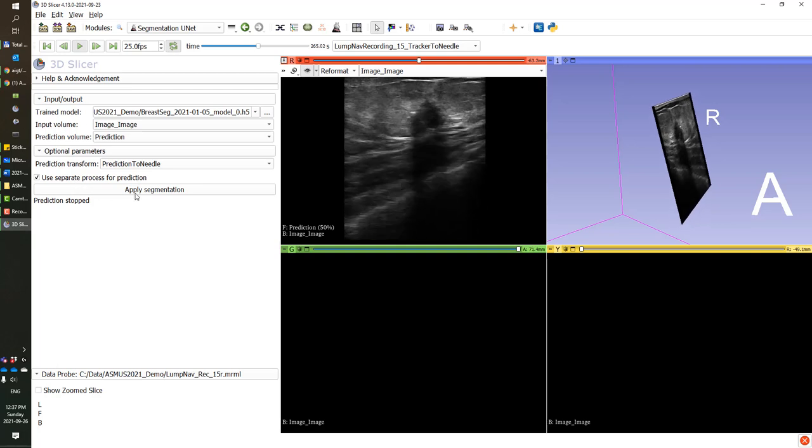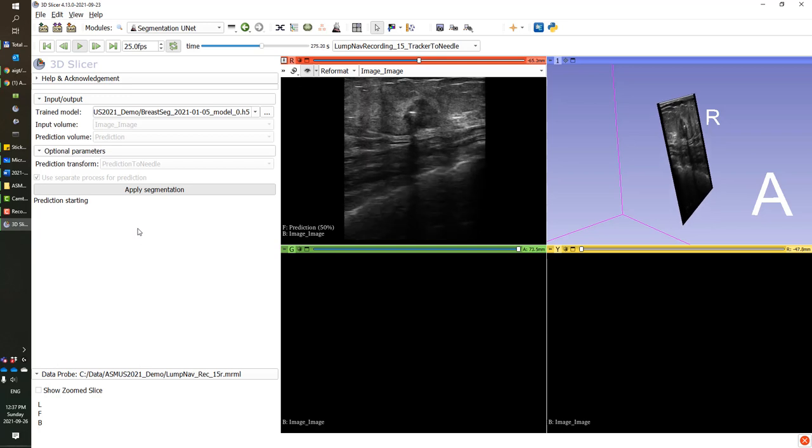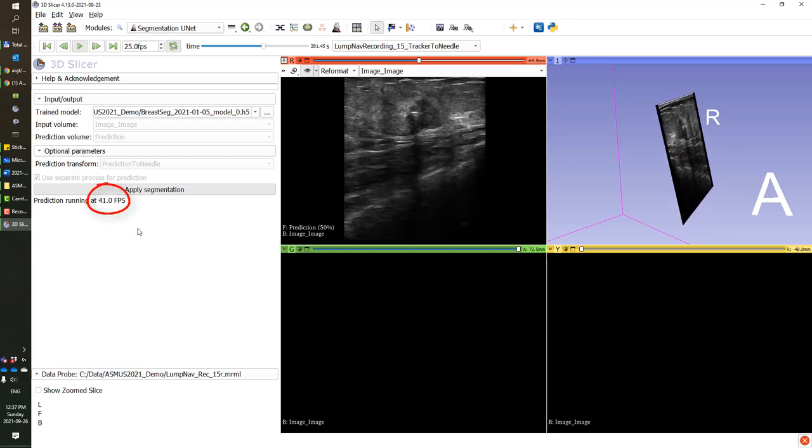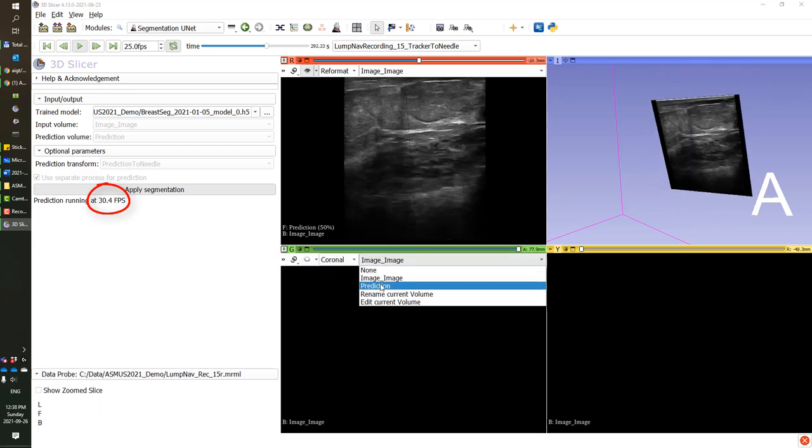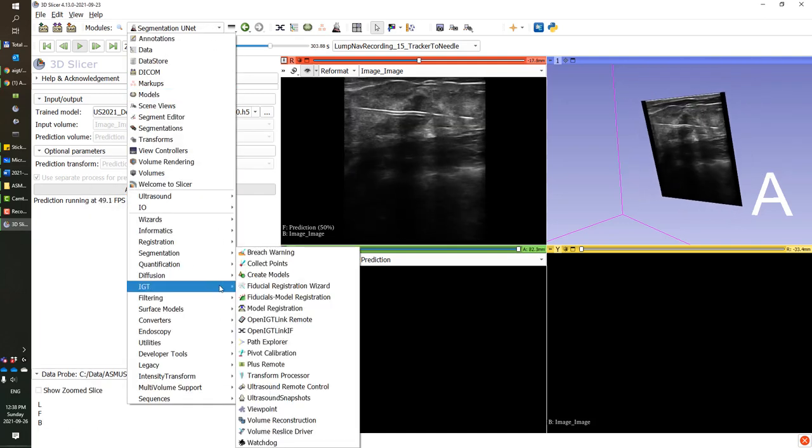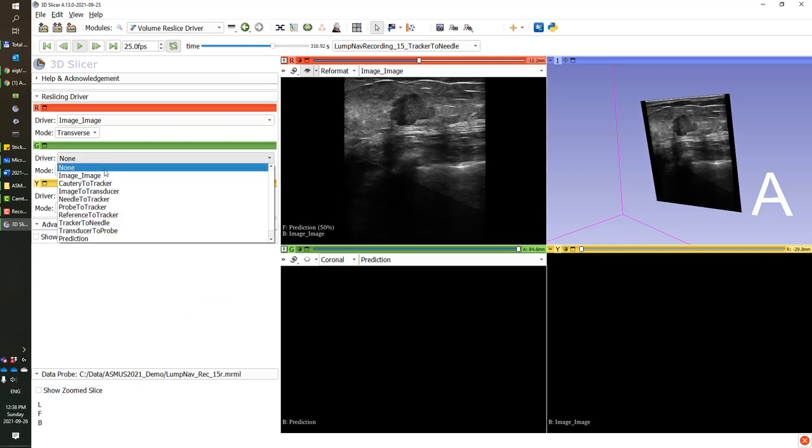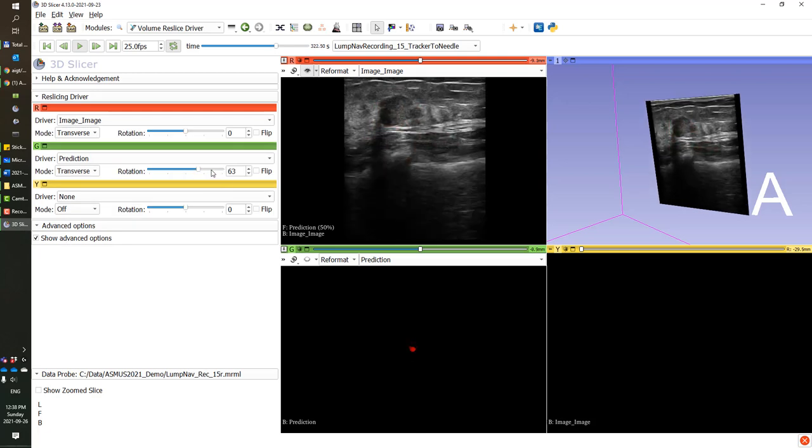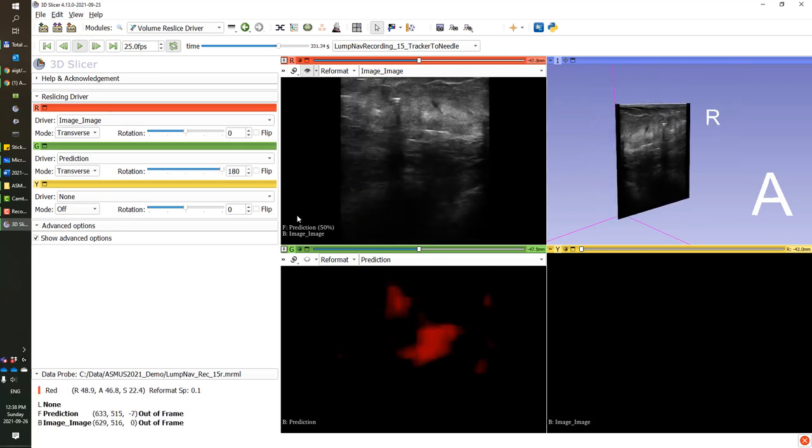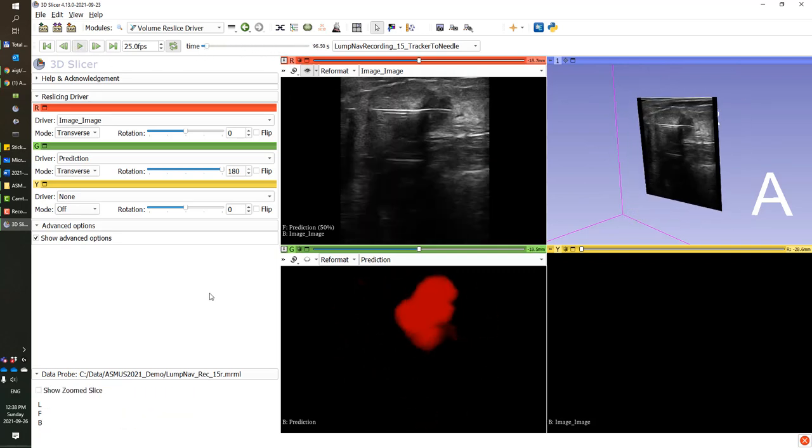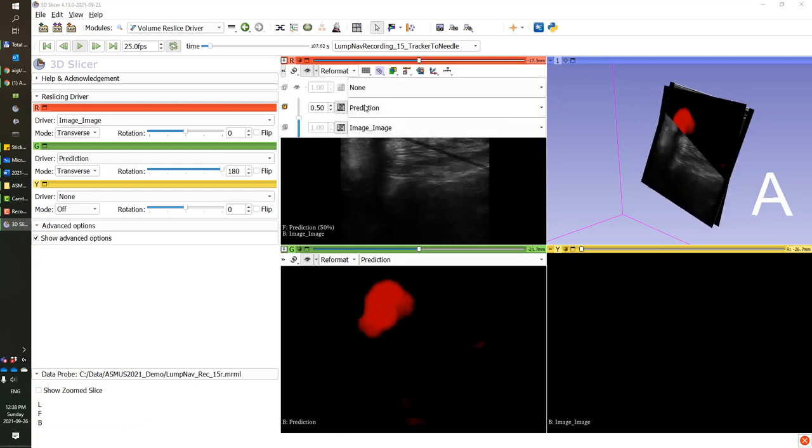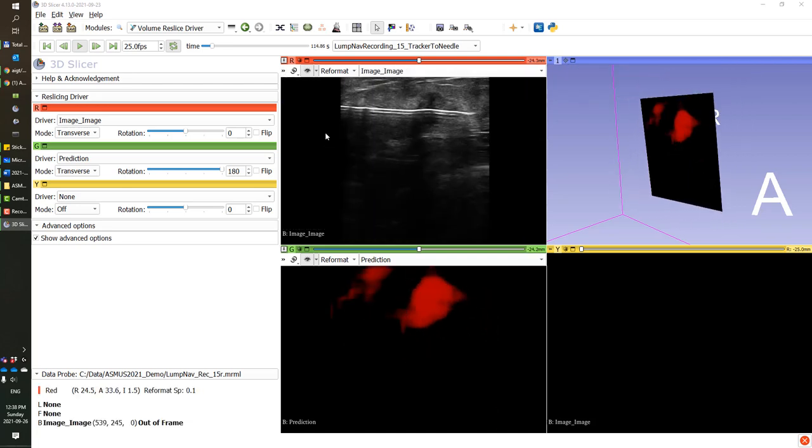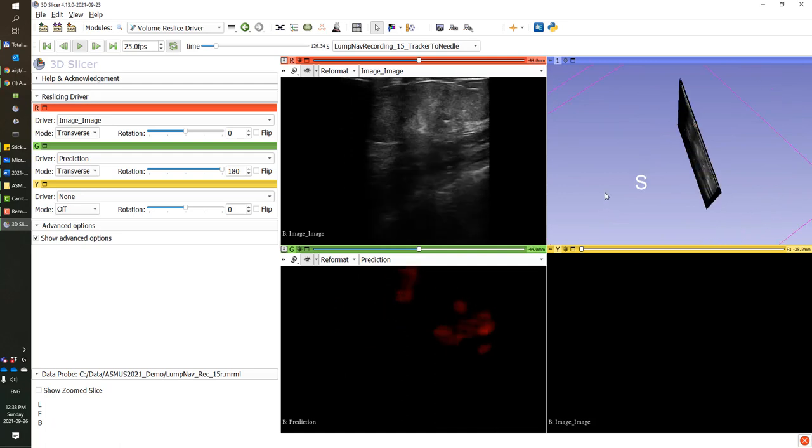So now we will run the predictions on a separate process. Initially you will see that the ultrasound images queued up in the process will produce a higher frame rate, but then that frame rate will hover around the frame rate of the ultrasound imaging when it caught up with the image acquisition process. Of course, the images are now not synchronized. The predictions are coming back from a separate process, so it is best to visualize them in a separate view. So now I'm adding the prediction to the green slice and I'm showing the ultrasound image in the red view of Slicer, and I hide the prediction from the ultrasound overlay.